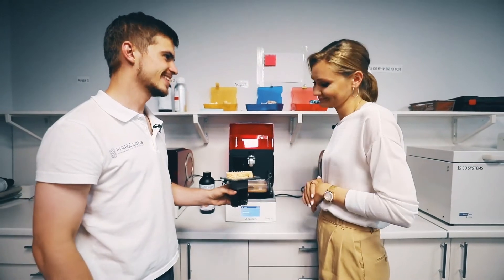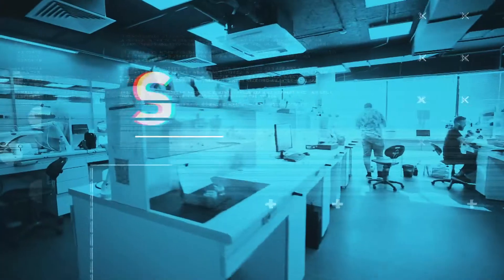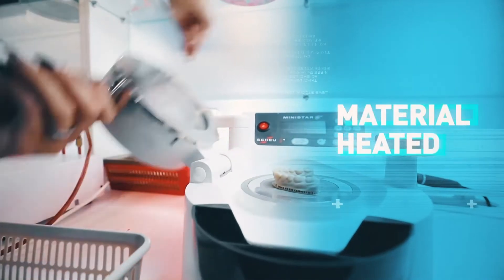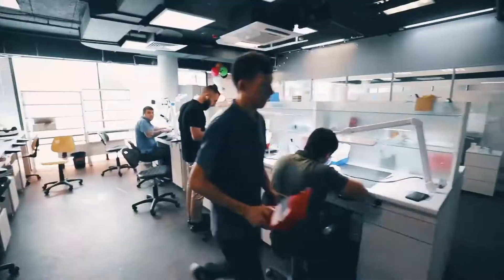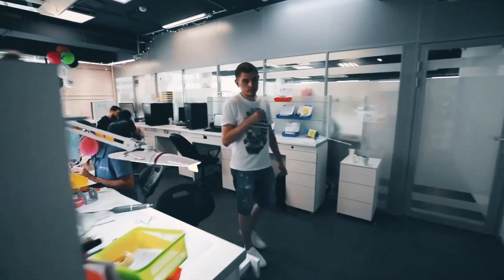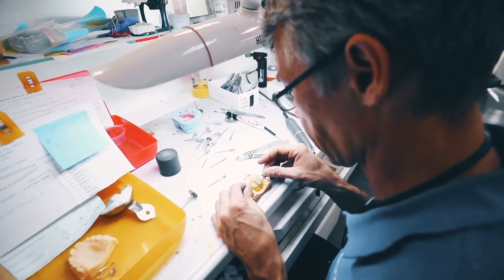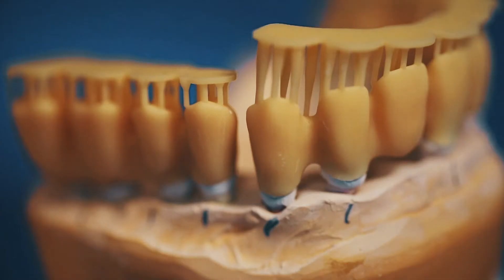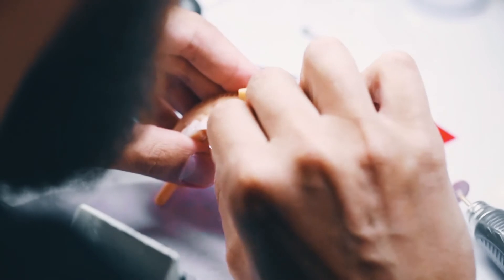Wow, what beautiful teeth! Yes, and all yours — they're almost ready, we just have to finish a few things and then pass them on. Final step: thermoforming — so actually making the aligner. After thermoforming, a group of technicians put the finishing touches by filing, buffing, and polishing the products. This almost microscopic attention to detail is what this company does best, whether it's for an aligner like mine, for custom implant components, or for any of the high-quality equipment it provides for dental labs.